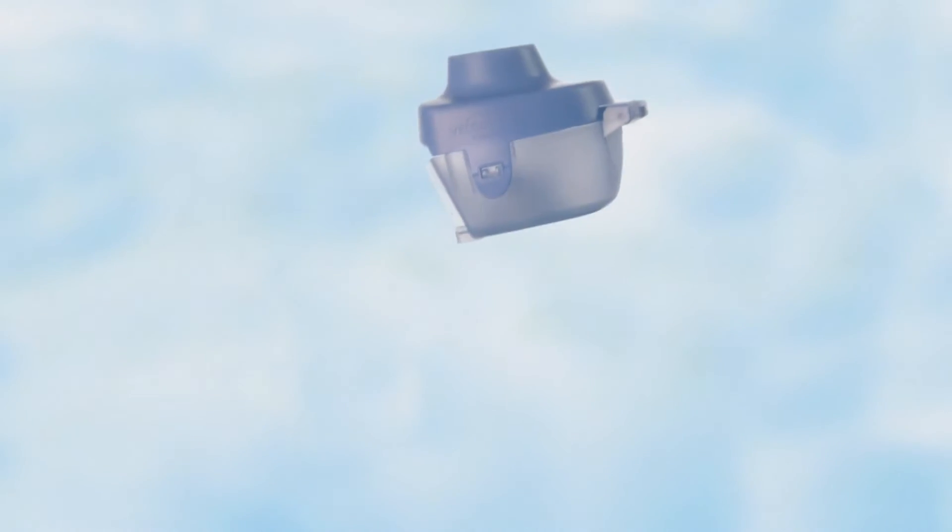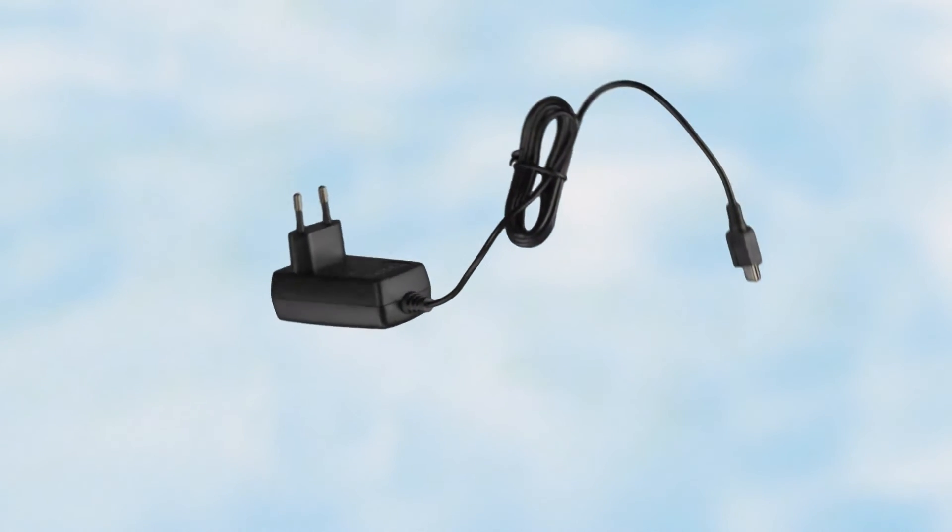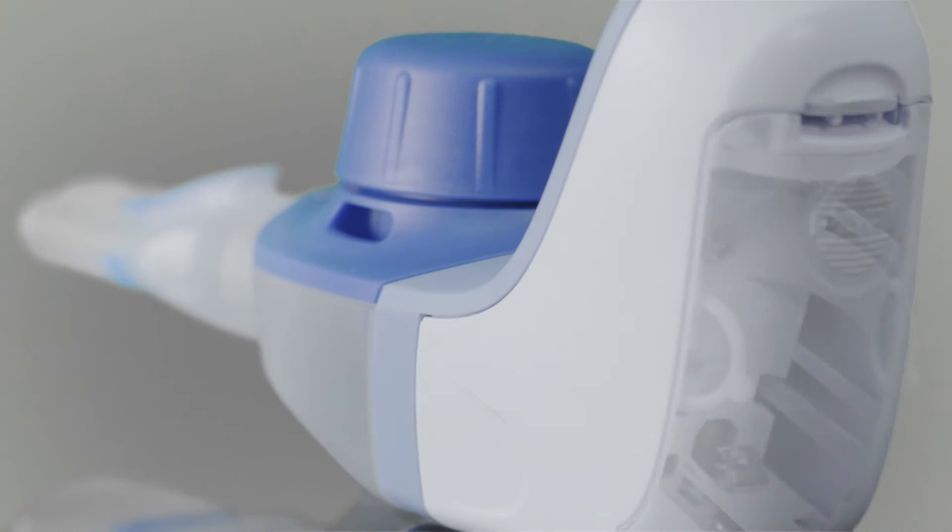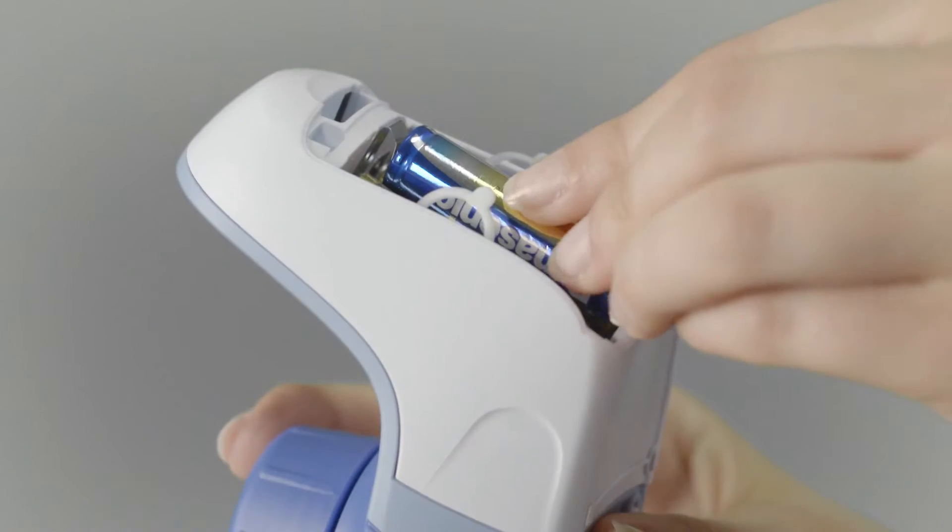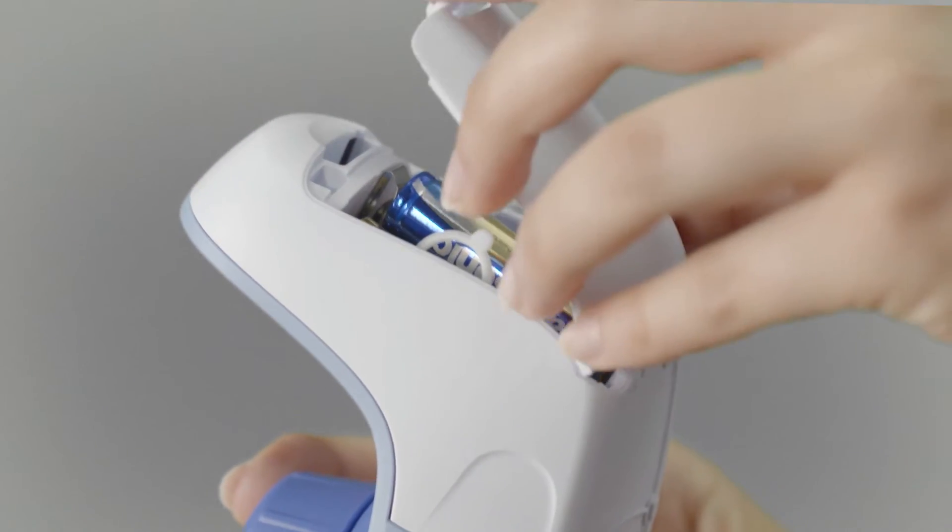Velox Care, the device for cleaning the membrane inside the nebulizer, and a mains adapter for use when inhaling at home. If out and about, Velox can also be used with batteries.